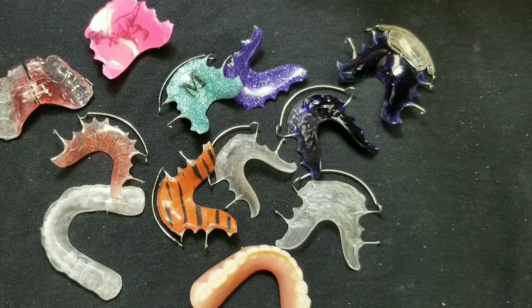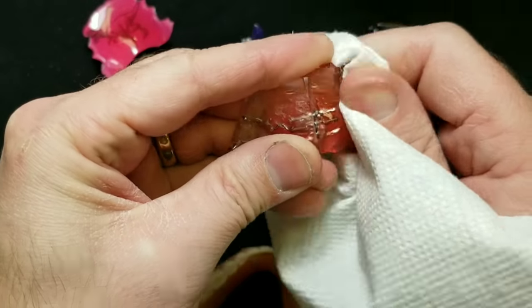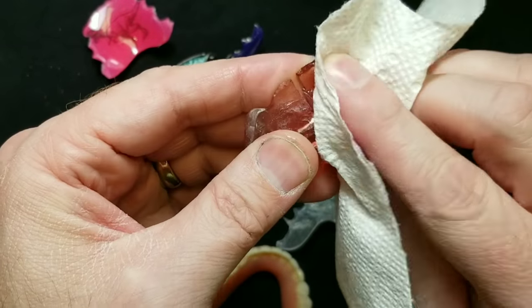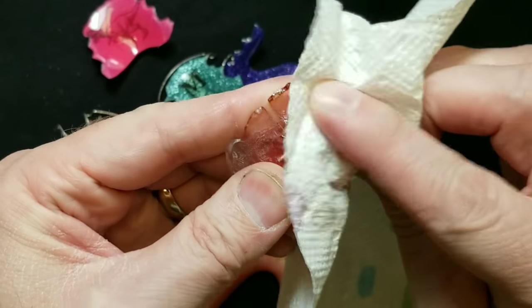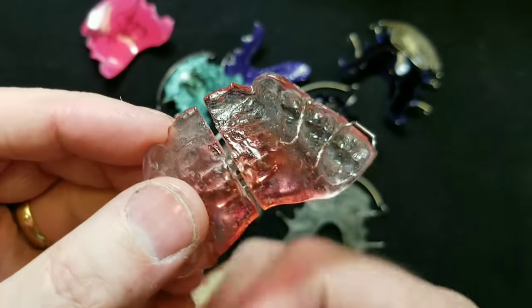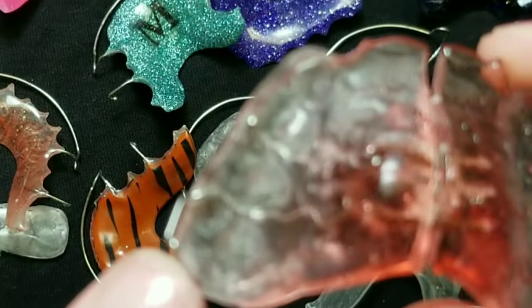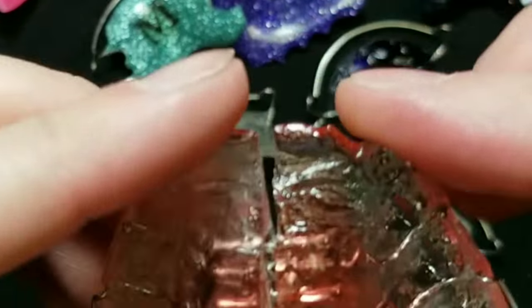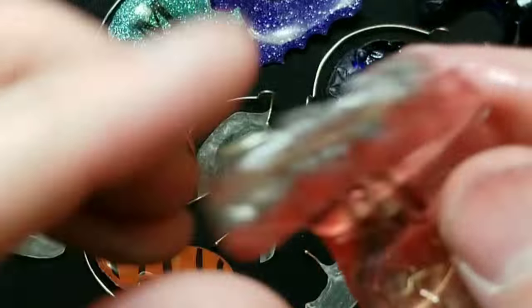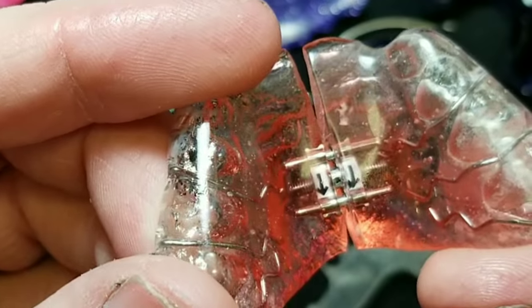All you need to do is take a nice clean paper towel and rub it in, because you don't want it to be liquid. Check it out — even though I'm rubbing it off, it still looks like it's liquid. You can see how pasty this side looks and how crisp and clean this side looks. For presentation, you can definitely tell that this side looks like glass and this side doesn't.